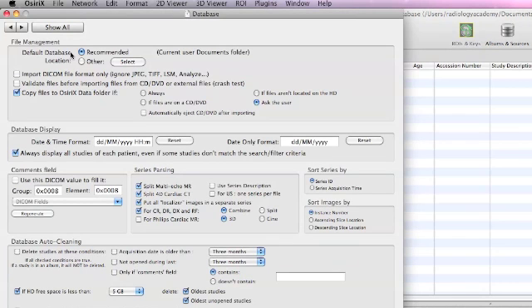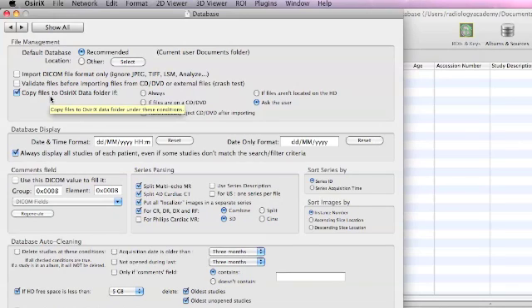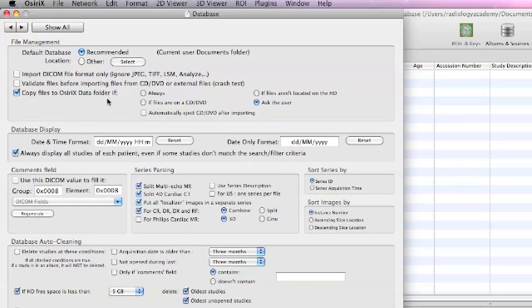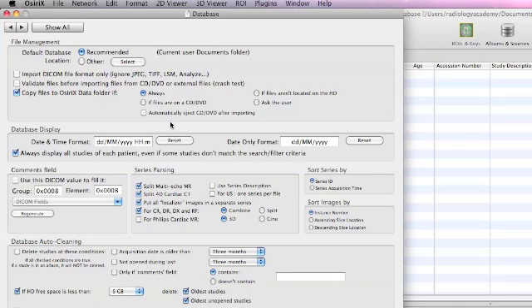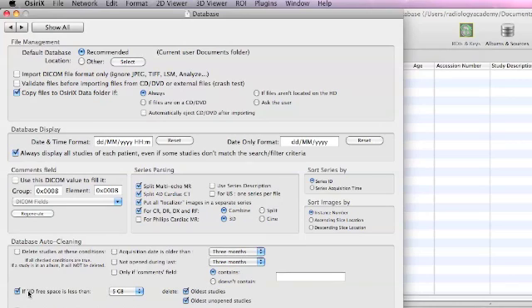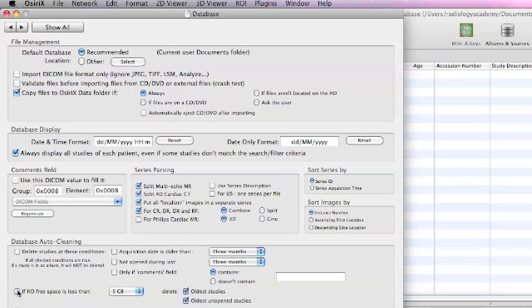If we move to the database option, there are a couple of important points. Under 'copy files to the OsiriX database folder,' it's important that we click on 'always' - then films which we are importing by CD will automatically move to the database without always asking. The second important point is under HD free space - it would usually delete files if there was less than five gigabytes of free memory. It's best to uncheck this so files will not be automatically deleted.